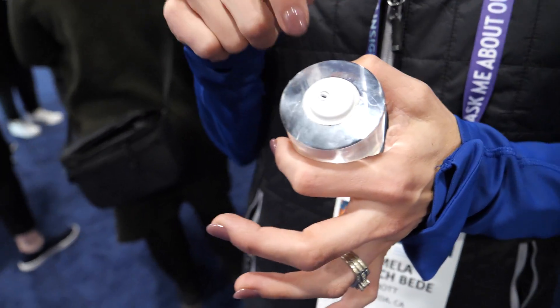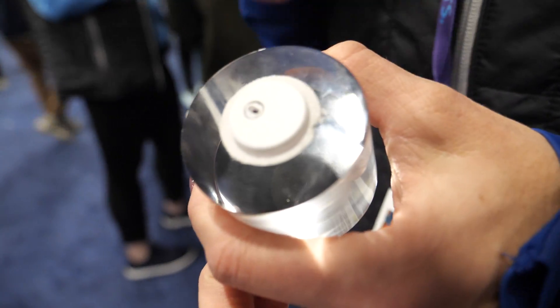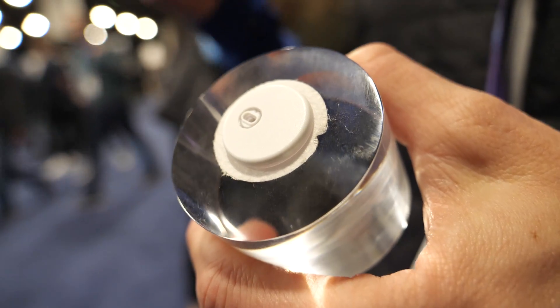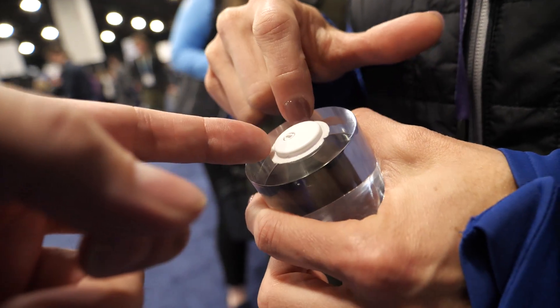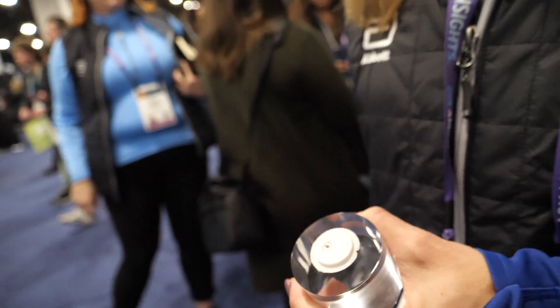But this is not what you put on your arm, is it? This is a representation. So this is Freestyle Libre 3 — it's the smallest CGM available. It fits like this, and there's this part that sticks to the skin — it's the adhesive, just like a plaster.